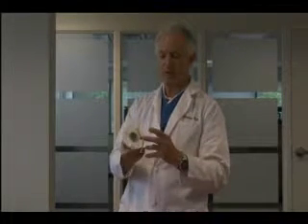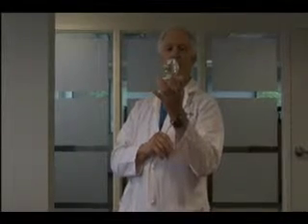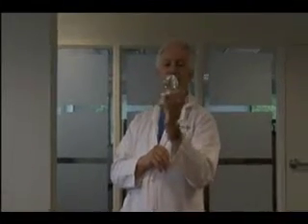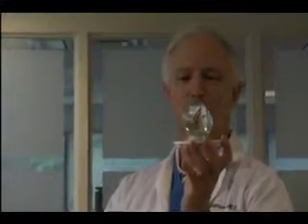Goulden Ophthalmics has developed this product with a special sort of oil inside the model so that it acts much like the vitreous gel and demonstrates this movement and syneresis, which bothers so many patients.